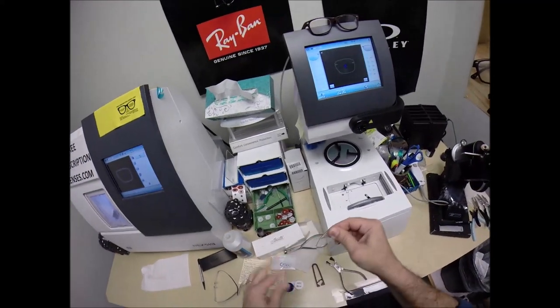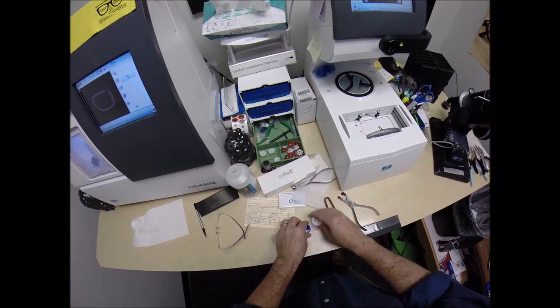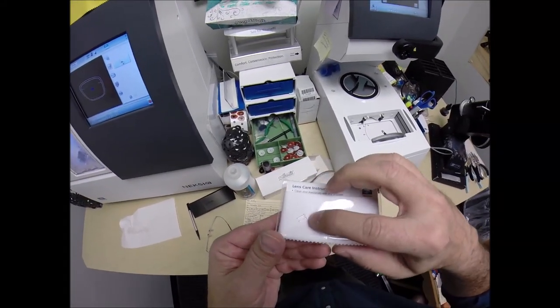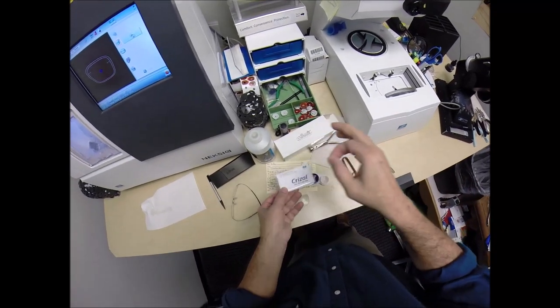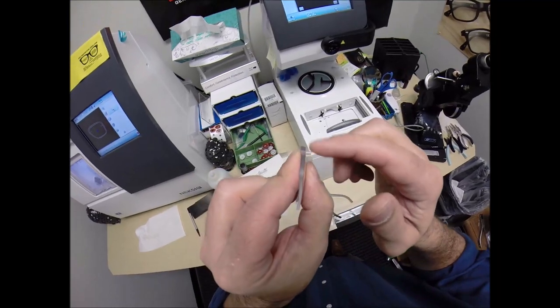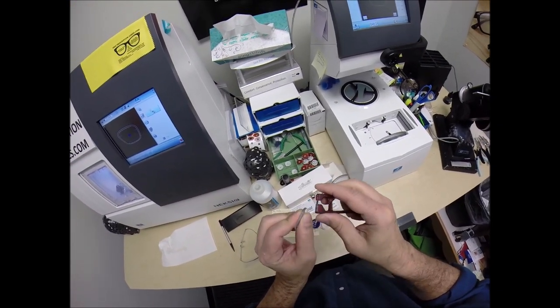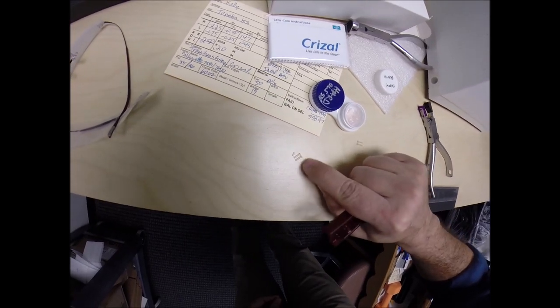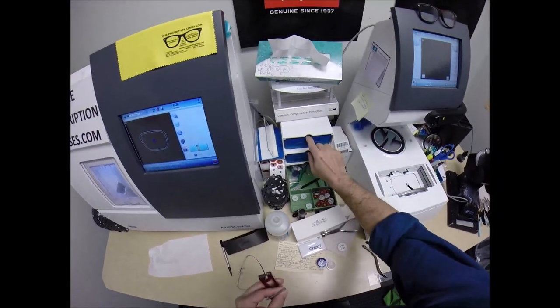Clean and dry that off. Silhouette has both soft and hard bushings — I'm going to use the soft ones. This is what goes through the lens — it slides through and has a hard piece in the back in a horseshoe shape. It slides through the holes, two pieces of metal attach in there, and I crimp it down. Now that they are all the way through, I use my little cigar cutter — it's a little blade — stick it in there and snap down. That trims it flush. You can see that little piece on the counter — minus the thickness of the lens, that's what gets trimmed off.